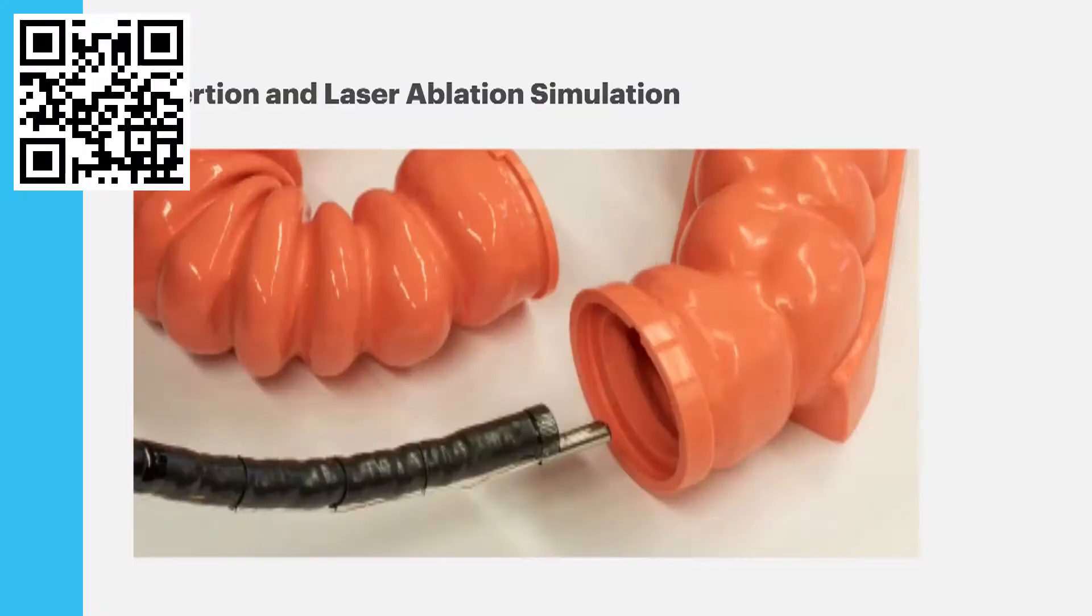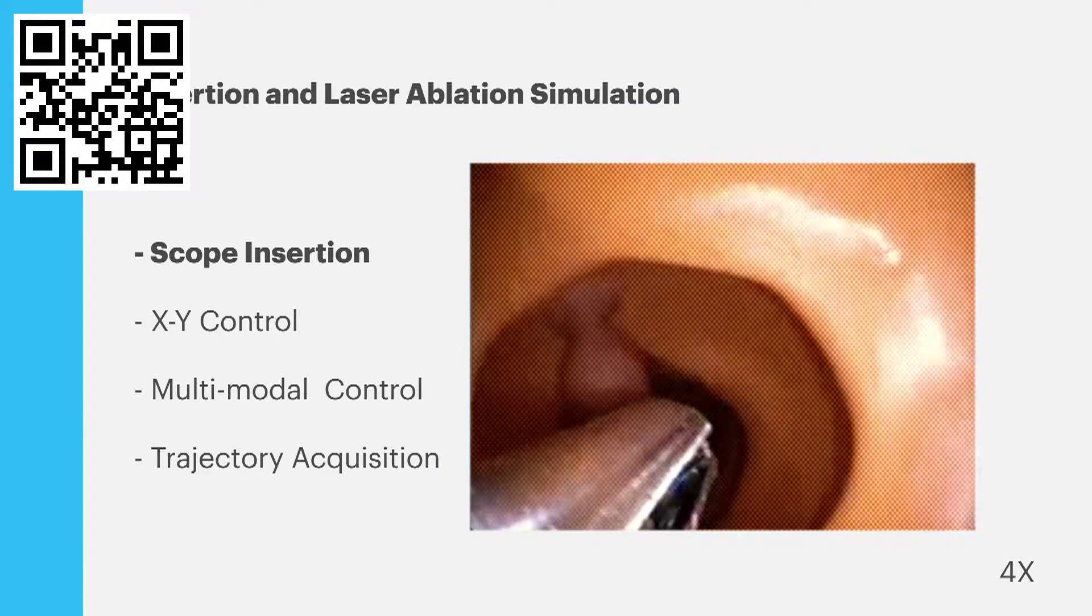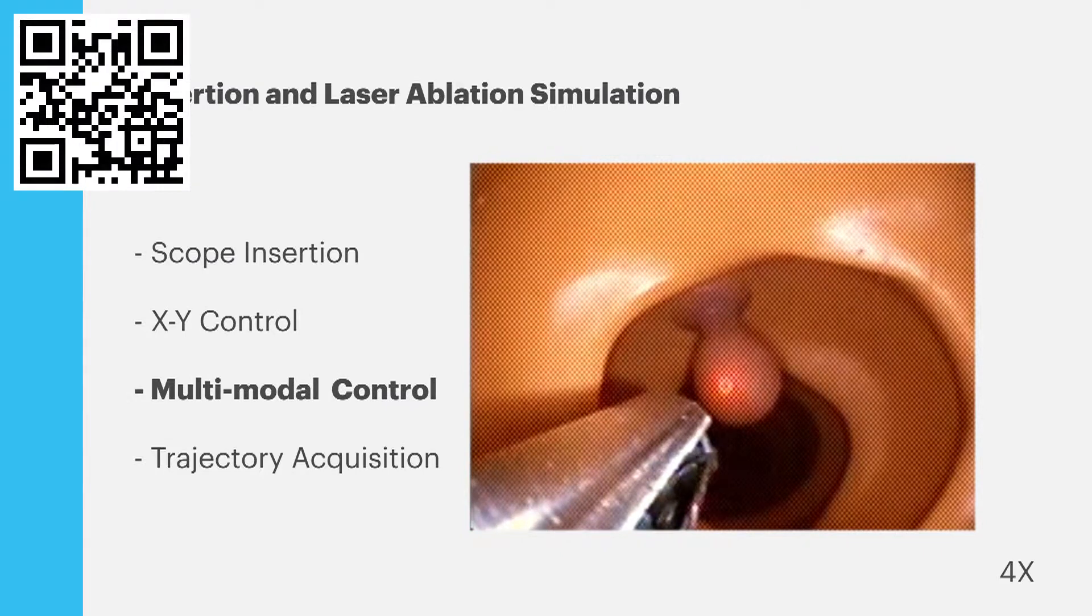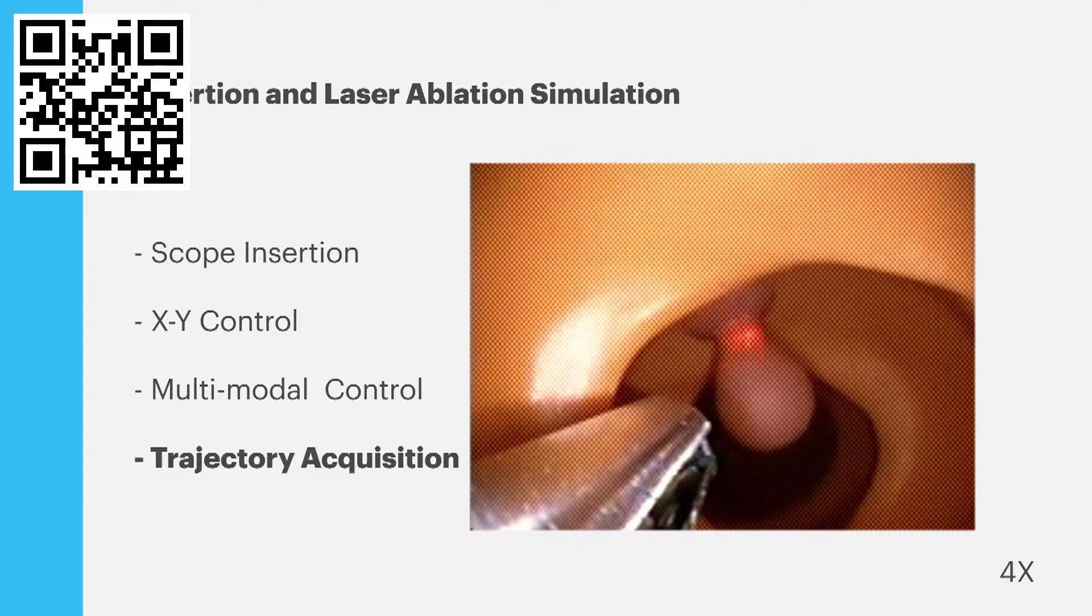We initiated the project looking at ENT as the focus application area for the technology. But the more research we did, particularly with conversations with clinicians and surgeons here in the Boston area, we found that laparoscopy and gastroenterology could be exciting application areas for the technology as well. This is a really exciting project for us because we're getting to leverage over a decade's worth of engineering experience accrued in micro-robotic design and fabrication here in the wood lab.